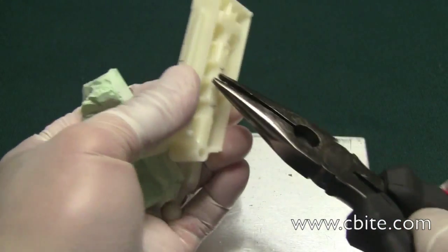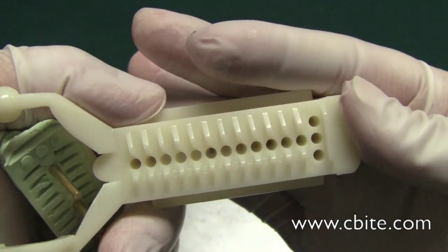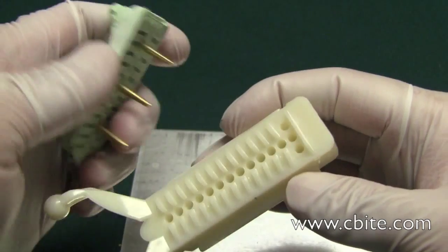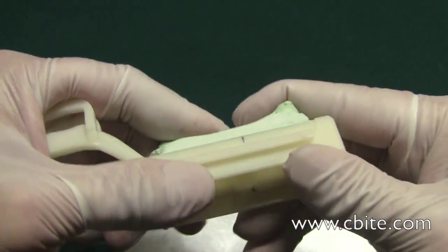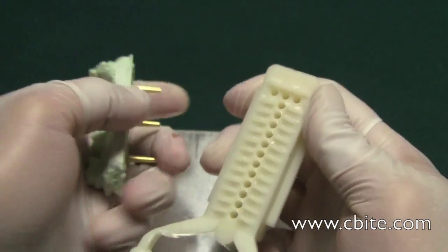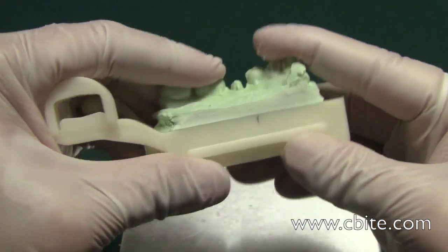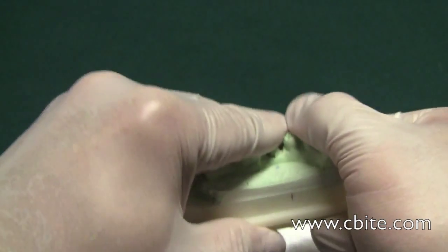If a pin is a little tight, just take a pair of pliers, and that's basically it. You will no longer have the issue of any protruding plastic or plastic deformity on the surface — it's a much cleaner method. There is that extra step, but after a while it will just be second nature. We are making some design changes and improvements so the ejection process will be a little simpler. If you have any questions, please don't hesitate to call us.